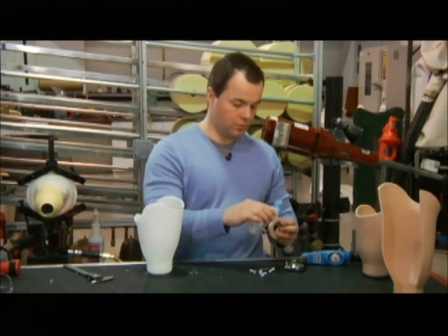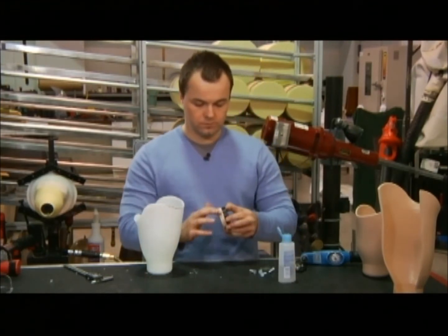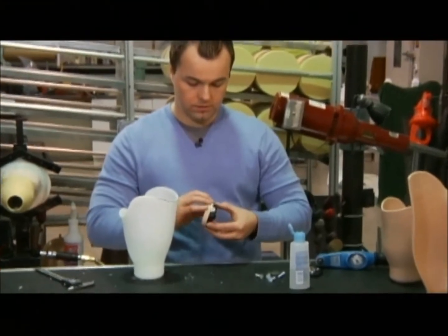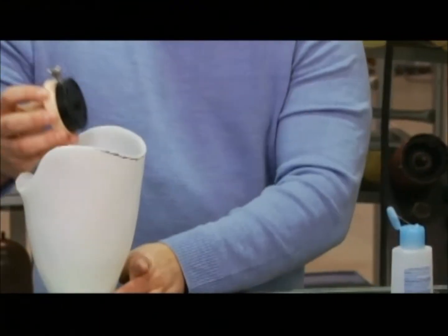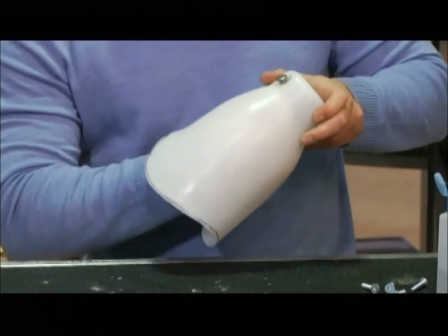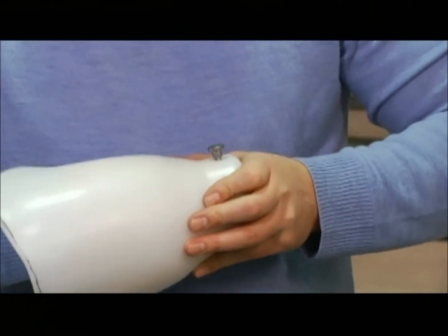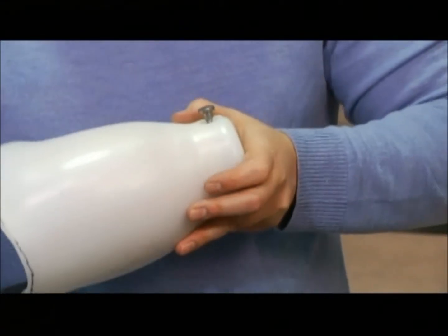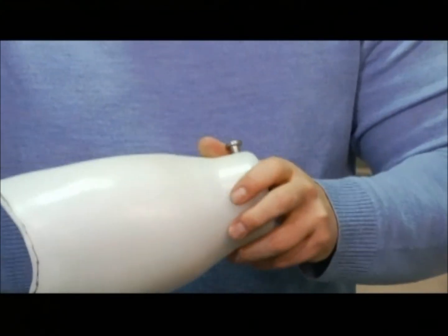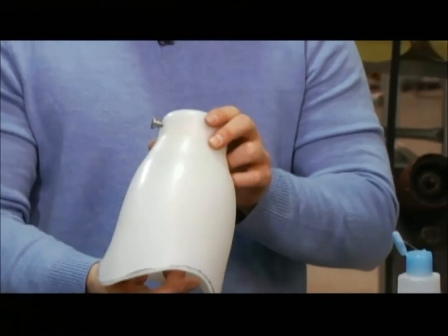What we suggest is water-soluble lubricant. You don't need a whole lot — just rub it along the outside edge of the lock. The lock should be installed in a typical manner. If you've had good vacuum and a good quality fabricated socket, the lock should be fairly snug and press fit down in the distal end of the socket.